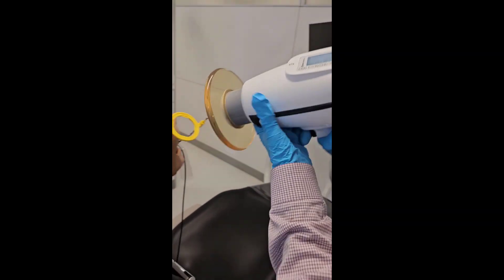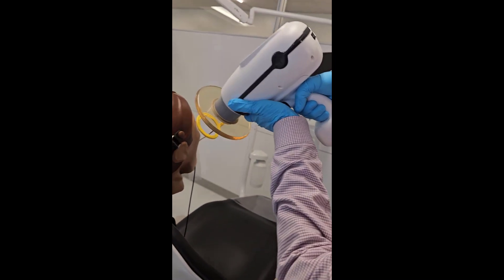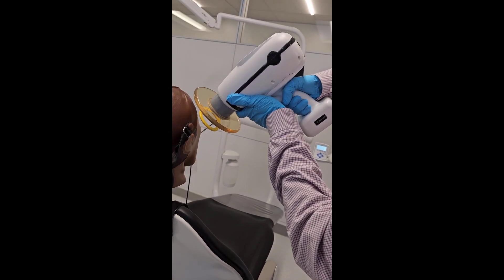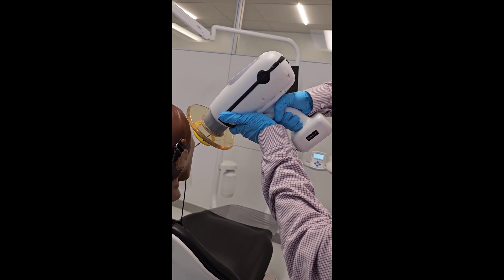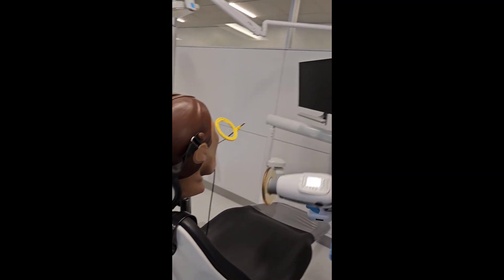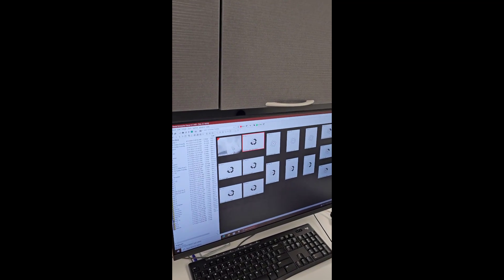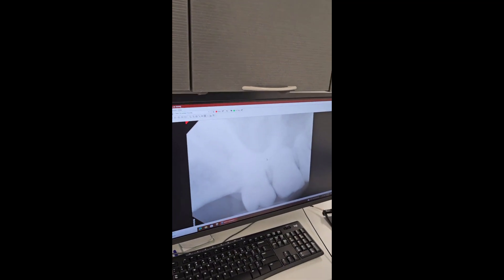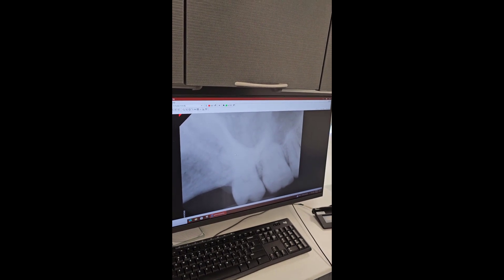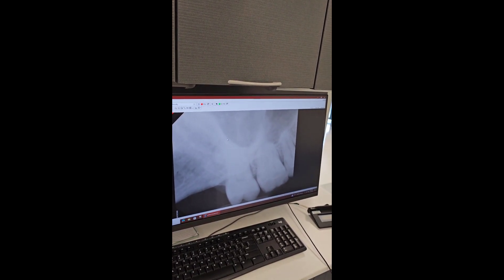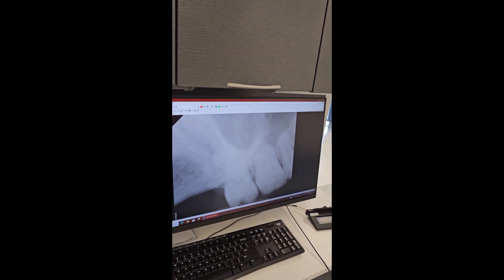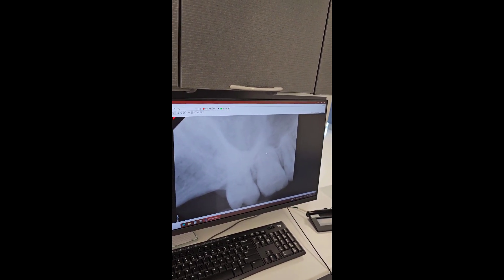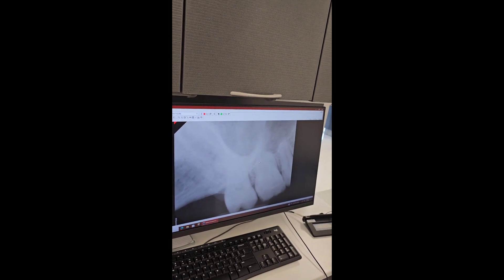So your periapical posterior — if I follow that parallel, it's lined up at a really steep angulation. Hard to even see if I'm horizontally correct or not. So what do we notice in this radiograph? You've captured the apices, but can I diagnose anything with the overlap of the zygomatic process? It just goes right over the roots of the second molar, and in some cases you see it over the roots of the first molar as well.